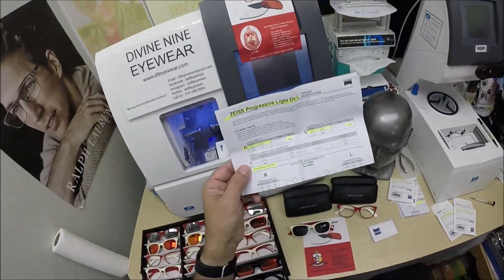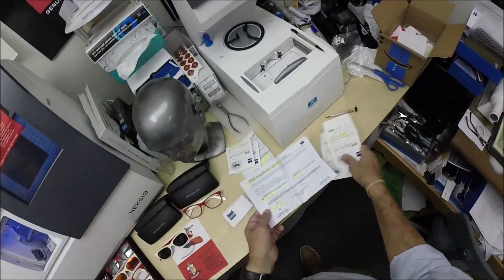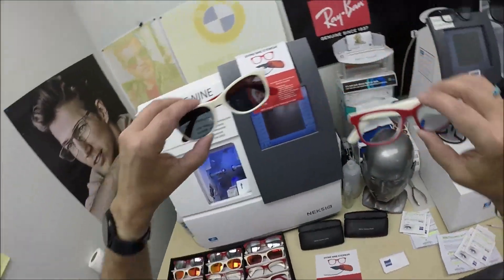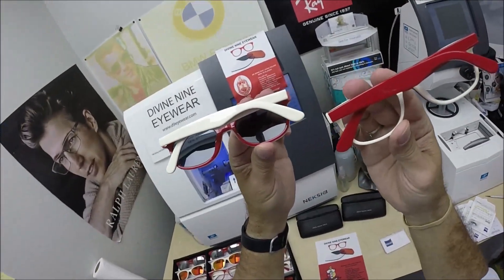She's a little bolder, but most women tend to be more colorful than their spouses — I know my wife is too. Cheryl's got one pair with clear lenses and one pair as polarized sunglasses, neither with anything on the outside. She just wants to wear the colors.